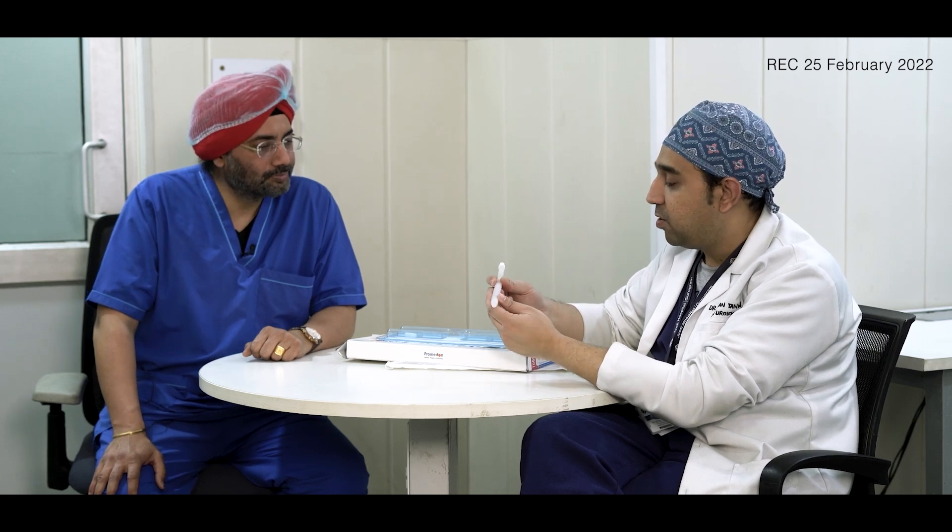The other thing I really appreciated was that comparing to other companies, sometimes their wires are a little on the shorter side. This has a wire in the entire length — this is a silver wire, for those who would like to know. And this is quite a thick wire comparing it with other products, which shows its quality.